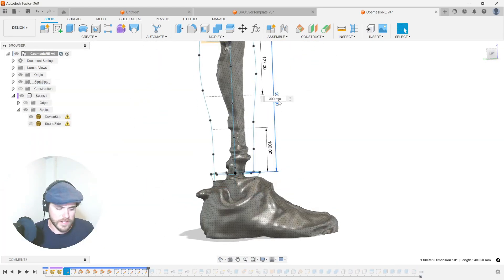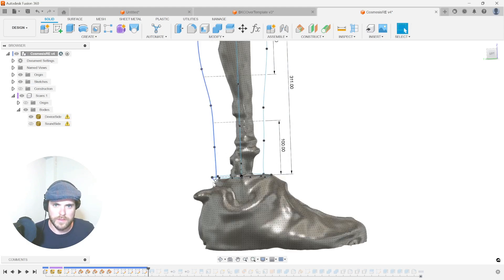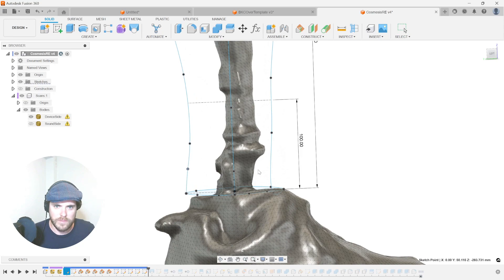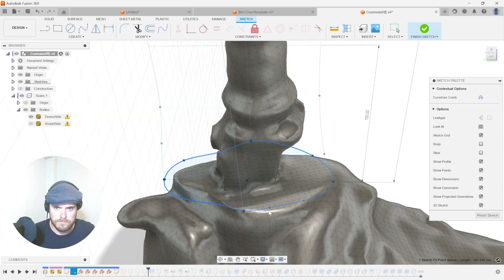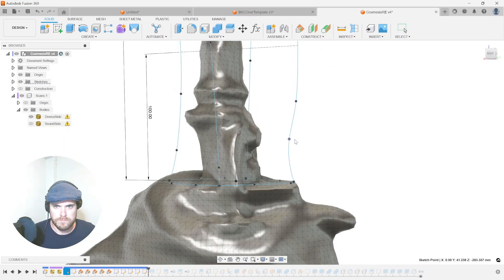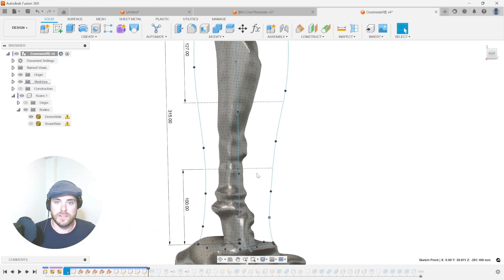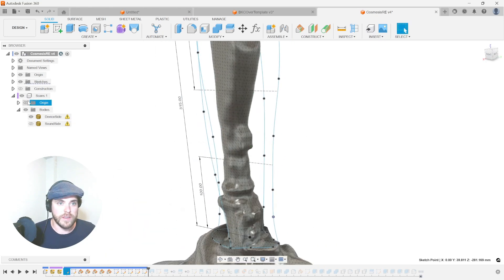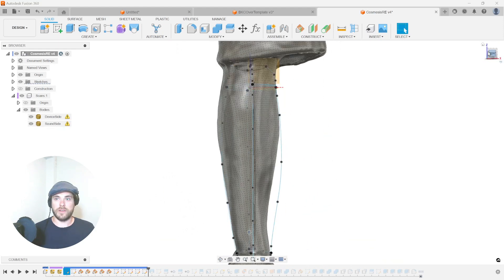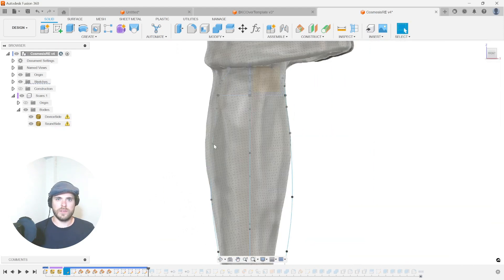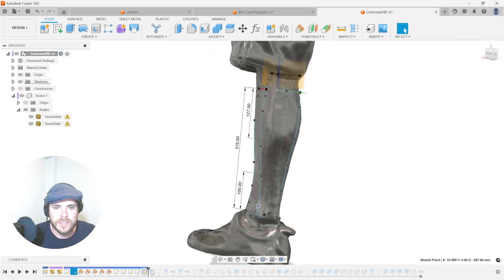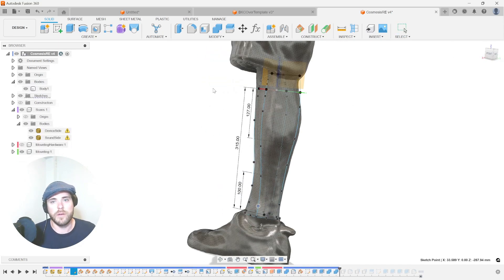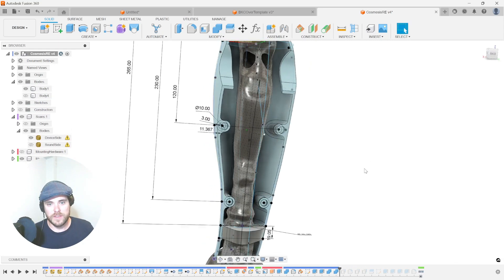Let's try that out. A little high. So let's do 315, 311. So great. Let's start dragging these around. So again, we're just using the lines and the free-floating splines that we left behind in our template. Let's look at it from the front now and do the exact same thing.